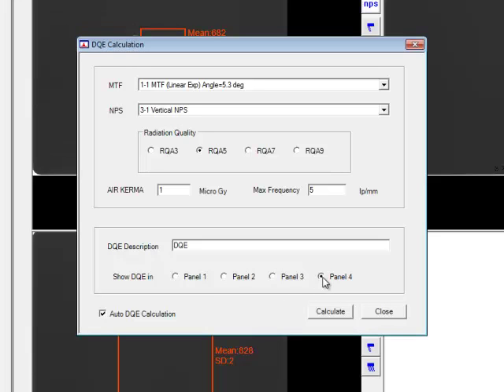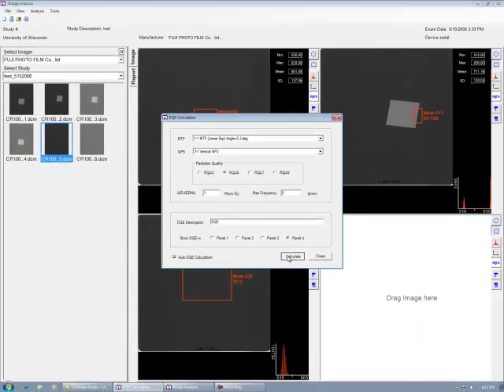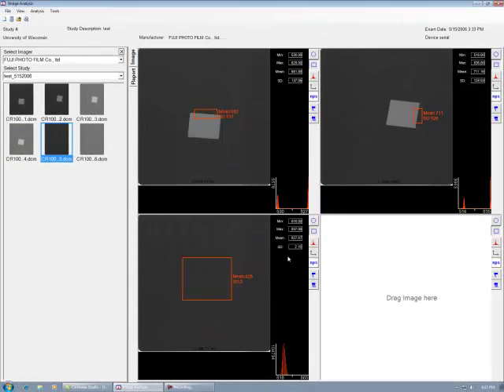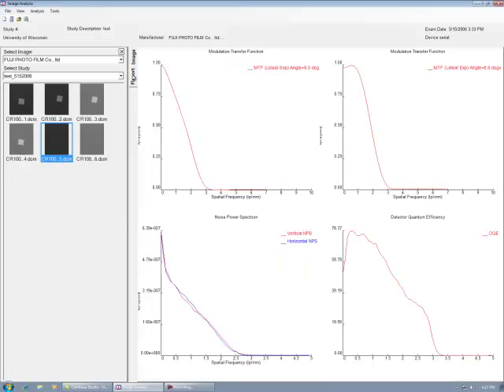You may use either the vertical or horizontal MTF and NPS curves for the DQE calculation. After you select the Calculate key, go to the Report button to see the results. You will see the MTF graphs, horizontal and vertical, the NPS, and finally the DQE all graphed out.